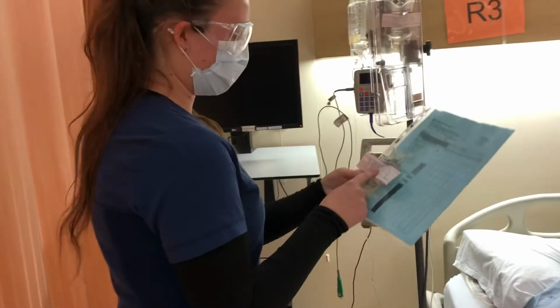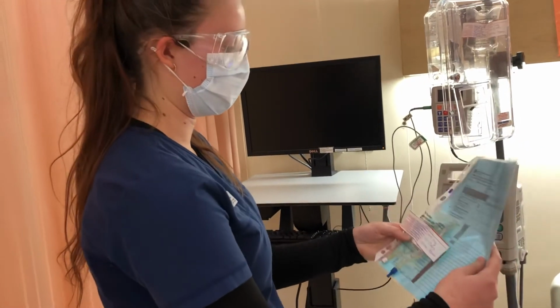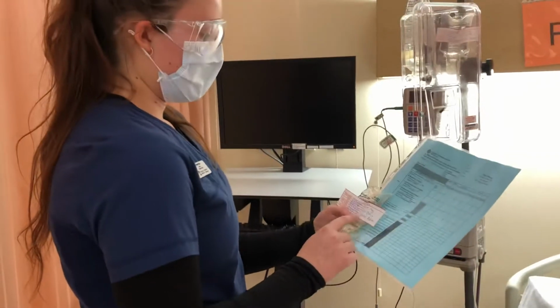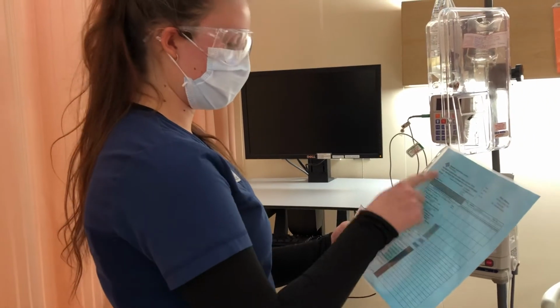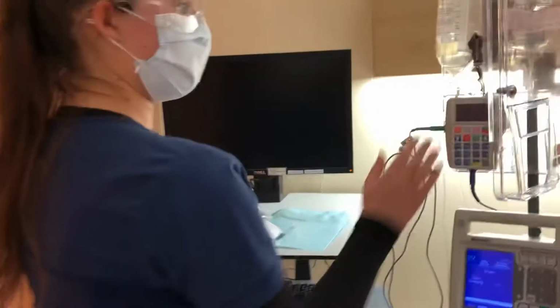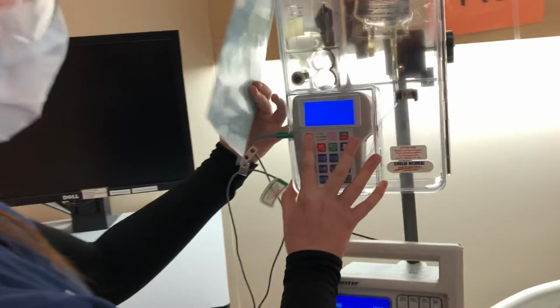So the dose is 50 milligrams, which when diluted with 45 milliliters of normal saline will give me a final concentration of 1 milligram per milliliter, and here I want 1 milligram per milliliter. The PCA dose is 1 milligram. Lockout interval is 5 minutes. Final bag volume of 50 milliliters. And this is due now, so I'm preparing to give it now. And this is the PCA form, so I'll be using the PCA machine. And this can be given IV, so that is all good. So I have a second nurse here who is going to watch me as I insert all the information into the PCA machine to make sure it is all correct. So I'm going to go on.